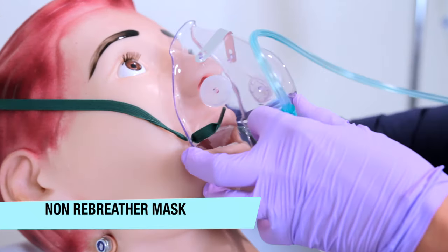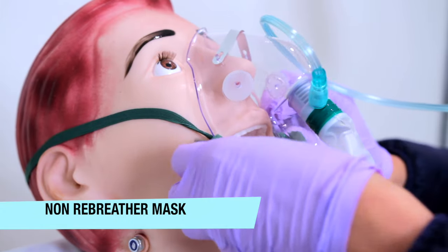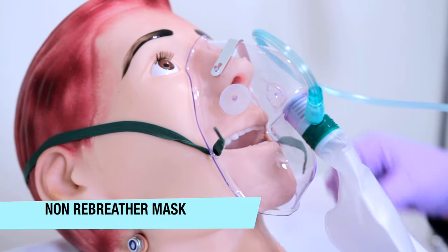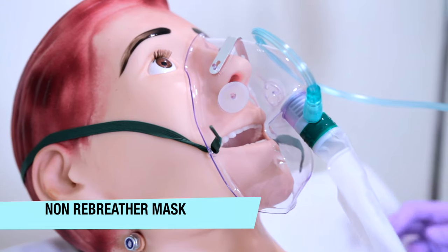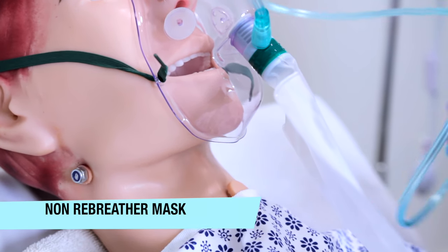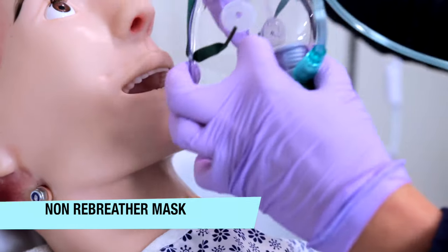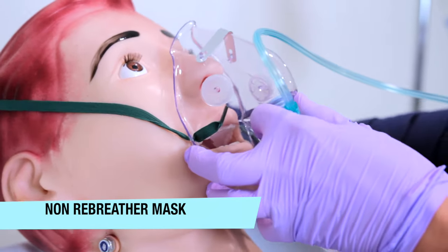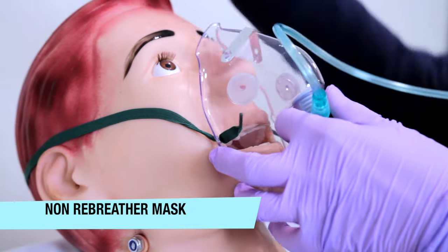On exhalation, gas will escape through the mask from the one-way expiratory valve and enter room air, so the patient breathes gas specifically from the bag. It's important to keep the reservoir bag from twisting and kinking, and away from linen or bed covers to work adequately. Some reasons for use are for your patients with traumatic injury to the lungs such as cystic fibrosis, pulmonary fibrosis, and it can be used for patients with cluster headaches.